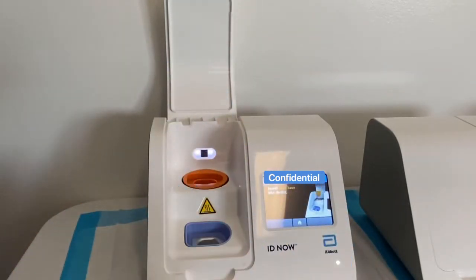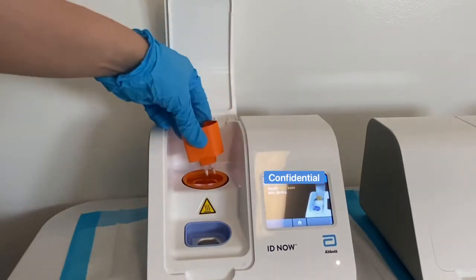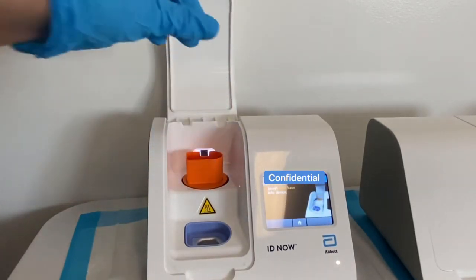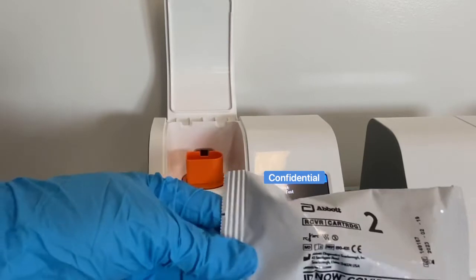You're gonna place the first one. It says to place the base in there. You're gonna want to firmly place it into the receptacle. There are two notches that go in — it kind of looks like a puzzle.